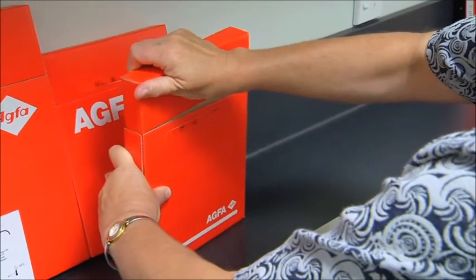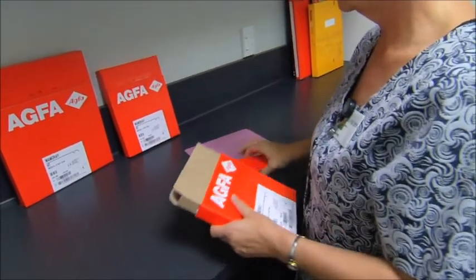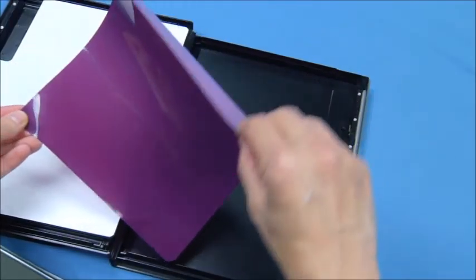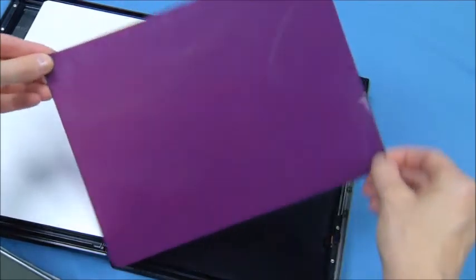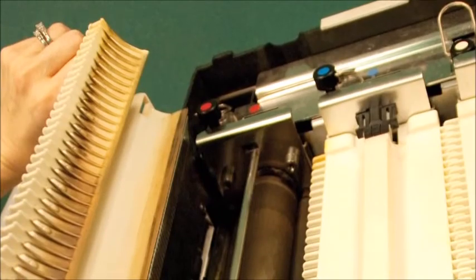Radiographic film must be handled with care. Fingerprints, nail marks, chemical splashes, dust specks, or bending the film can cause artifacts, which may interfere with diagnosis. Processing in a dirty machine can also create artifacts.